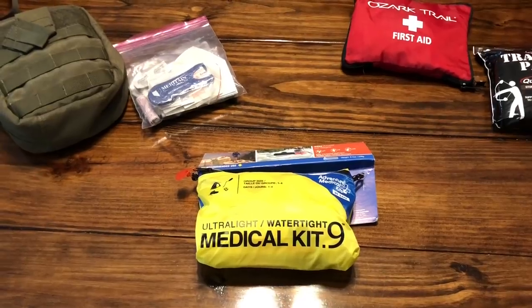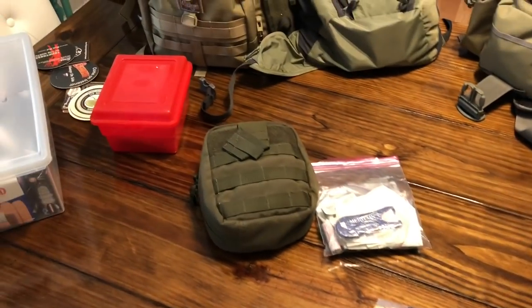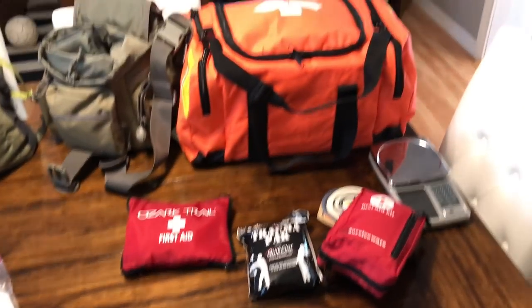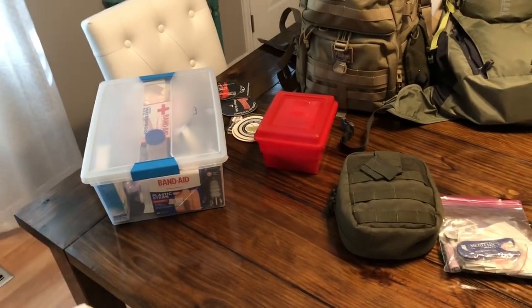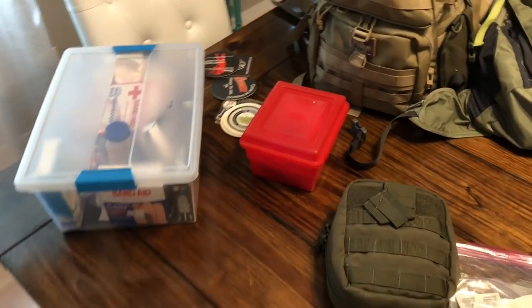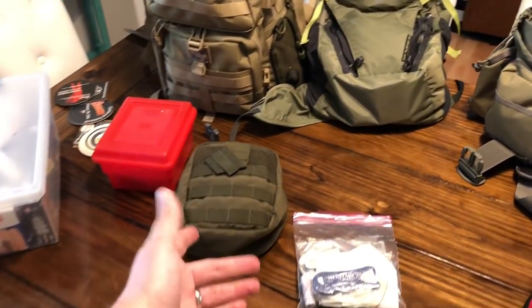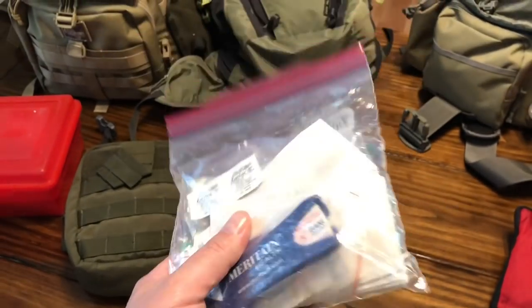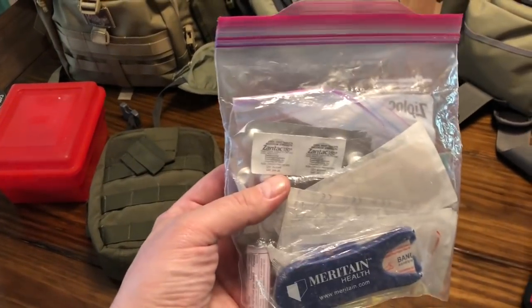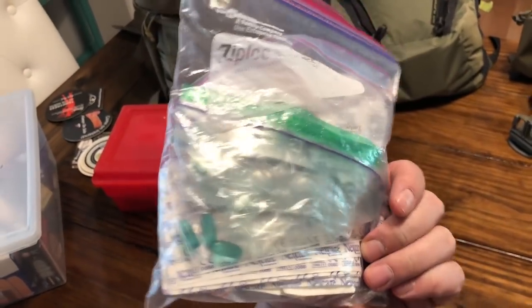We're going to cover what's inside and open it up. I wanted to give some perspective - I have a lot of different medical kits, about nine kits here. I have a kit that goes in the camper, one I keep in the truck, and then this was a kit I forgot to bring when we went hiking out in the Rocky Mountains, so I had a throw-together kit basically.